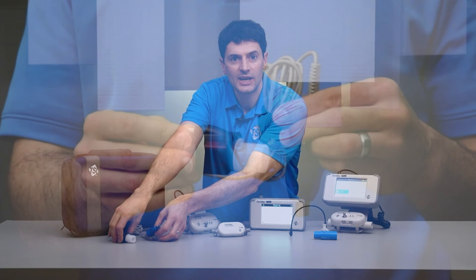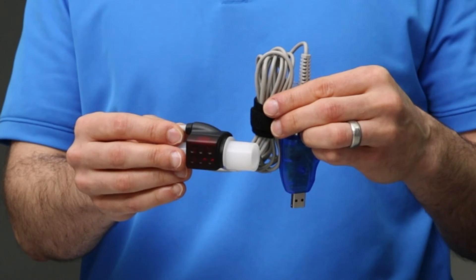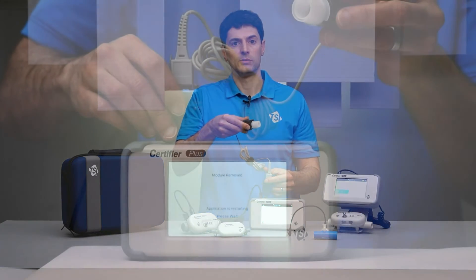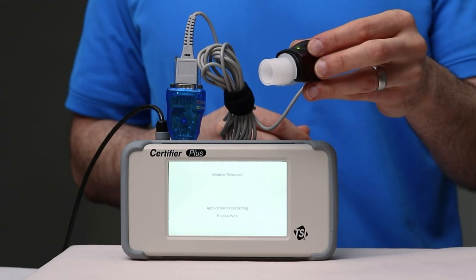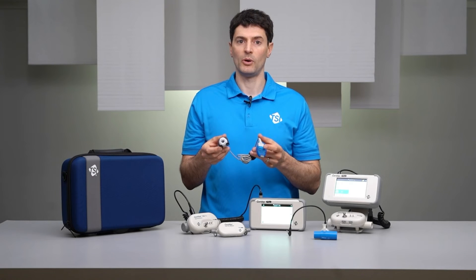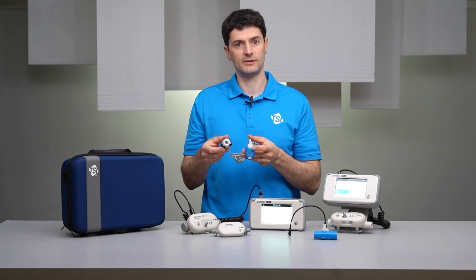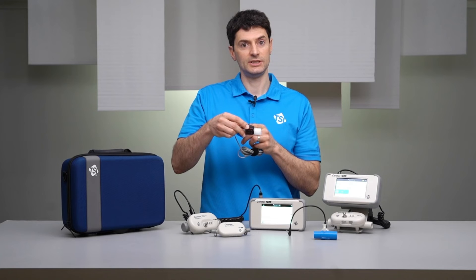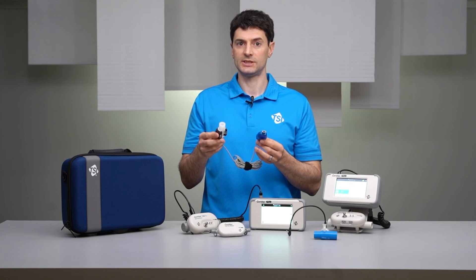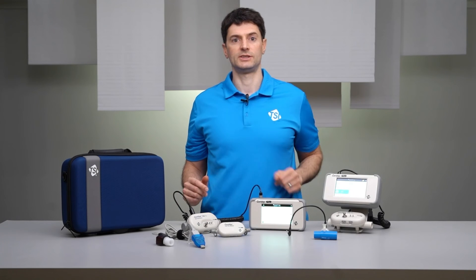The anesthesia multi-gas sensor detects and measures the real-time concentration of anesthetic agents, carbon dioxide, and nitrous oxide gas flows. The anesthesia sensor plugs into the USB-A port on the certifier interface, which displays its readings and provides user control. The anesthesia sensor is an accessory for both the Certifier Plus and Certifier Pro models. It is sold as the Model 4093 anesthesia sensor kit, which includes the anesthesia sensor, the adapter, and the USB converter. The anesthesia sensor coupled with the low flow module makes for a complete certifier solution for testing anesthesia machines.